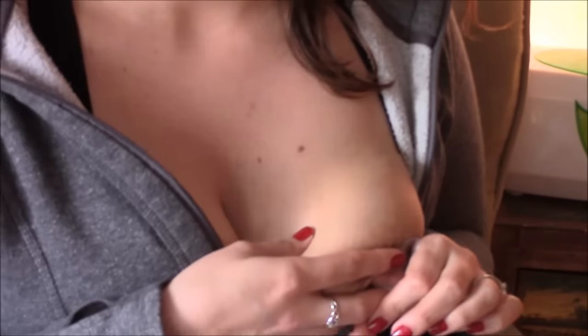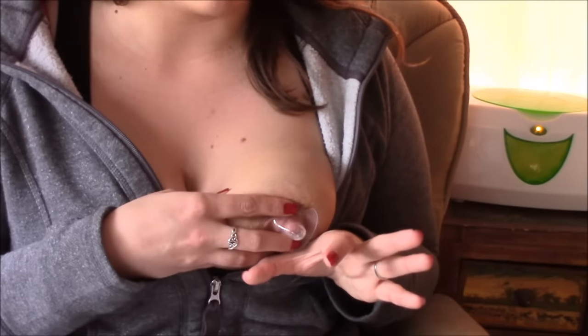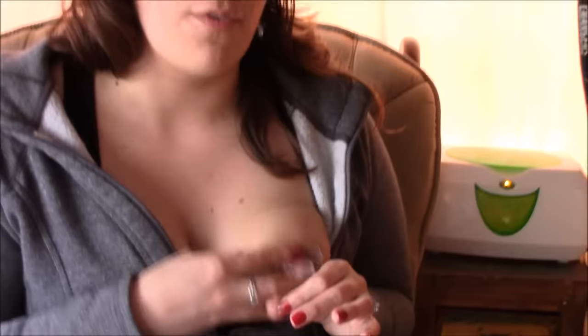It says to tickle the baby's lower lip with the nipple until the baby opens wide. You want to tickle the baby's bottom lip until they open their mouth wide. It's important that you're not putting your nipple right into the baby's mouth — you actually wait for them to open up, because you don't want to always be forcing the nipple in. When breastfeeding without the shield, it's much softer tissue, so you want the baby to associate feeding with opening their mouth and then the food comes, rather than having it jammed in like a bottle.